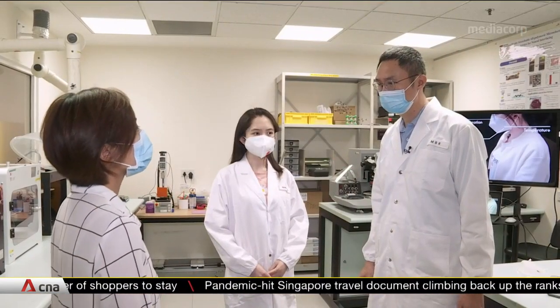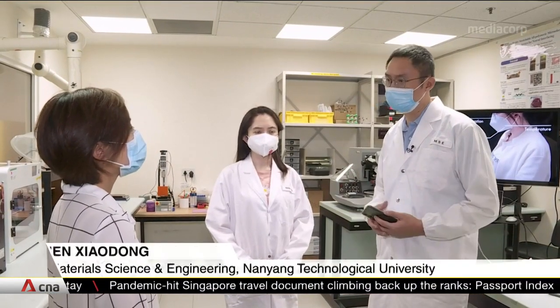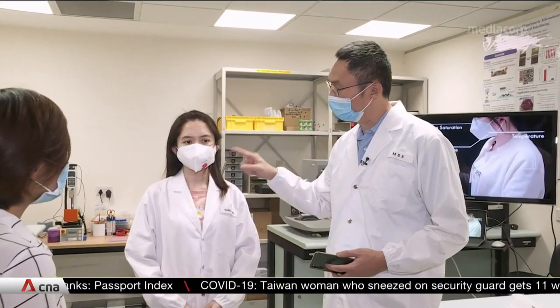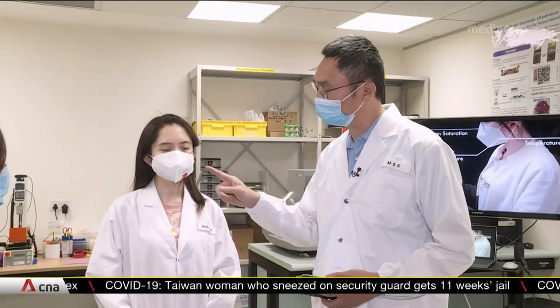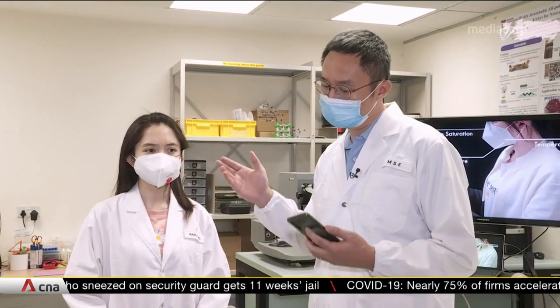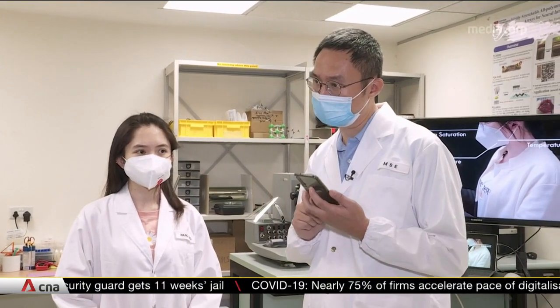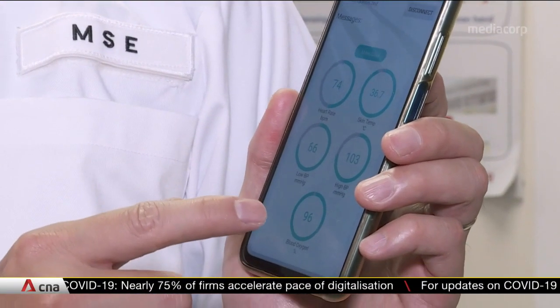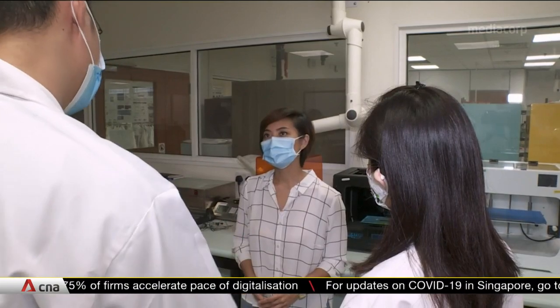Could you explain how this mask works? Basically, we integrate four different kinds of sensors on one mask. We have blood oxygen saturation and heart rate, blood pressure, and also skin temperature. All this data will be transmitted remotely via Bluetooth to a smartphone. These healthcare indicators can determine if the wearer has signs of coronaviruses like COVID-19.